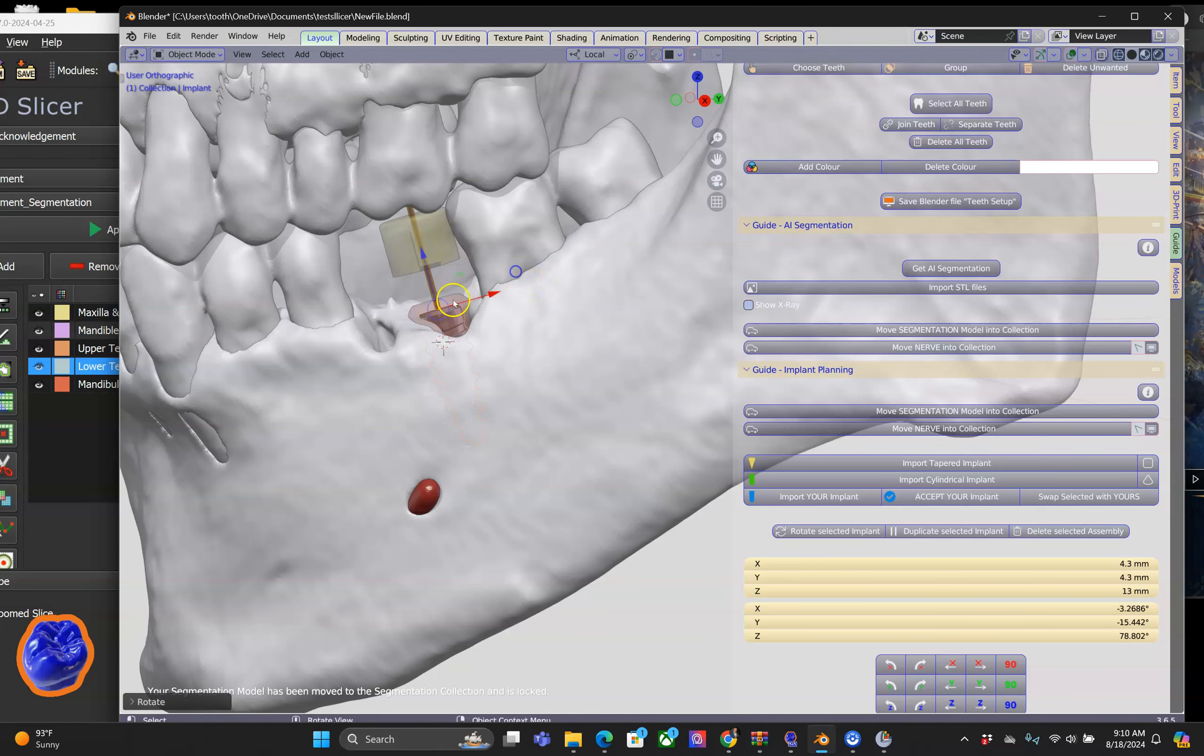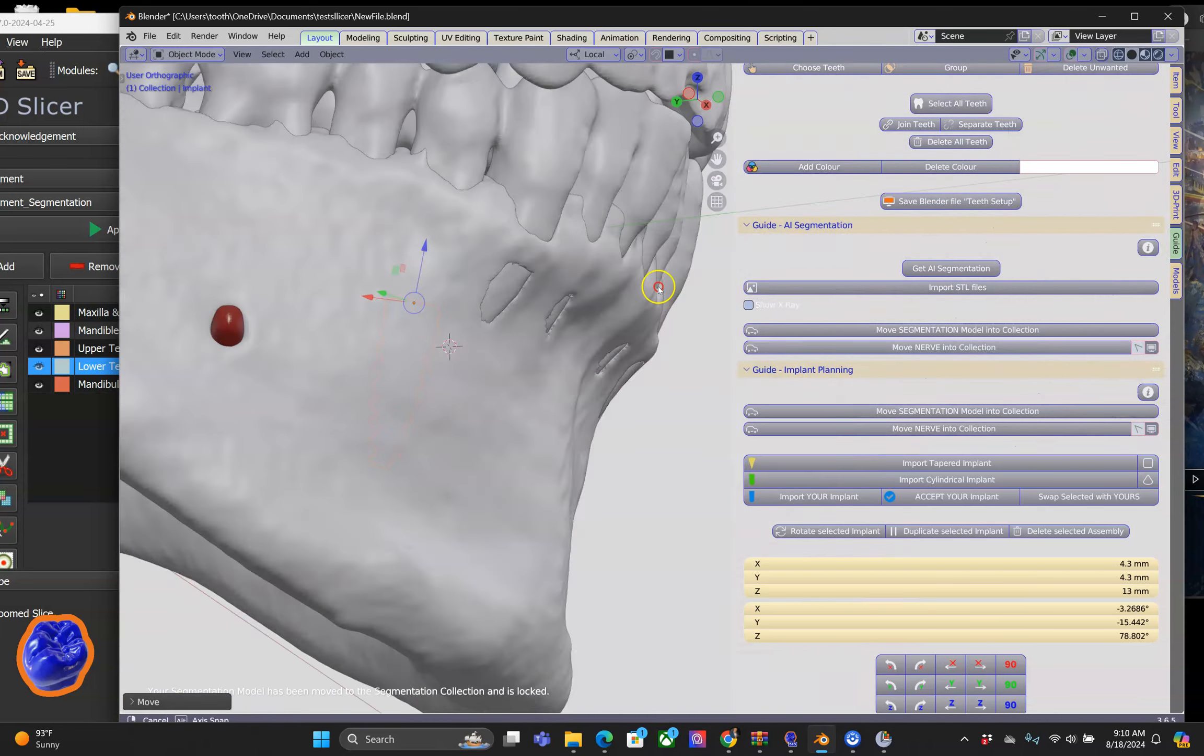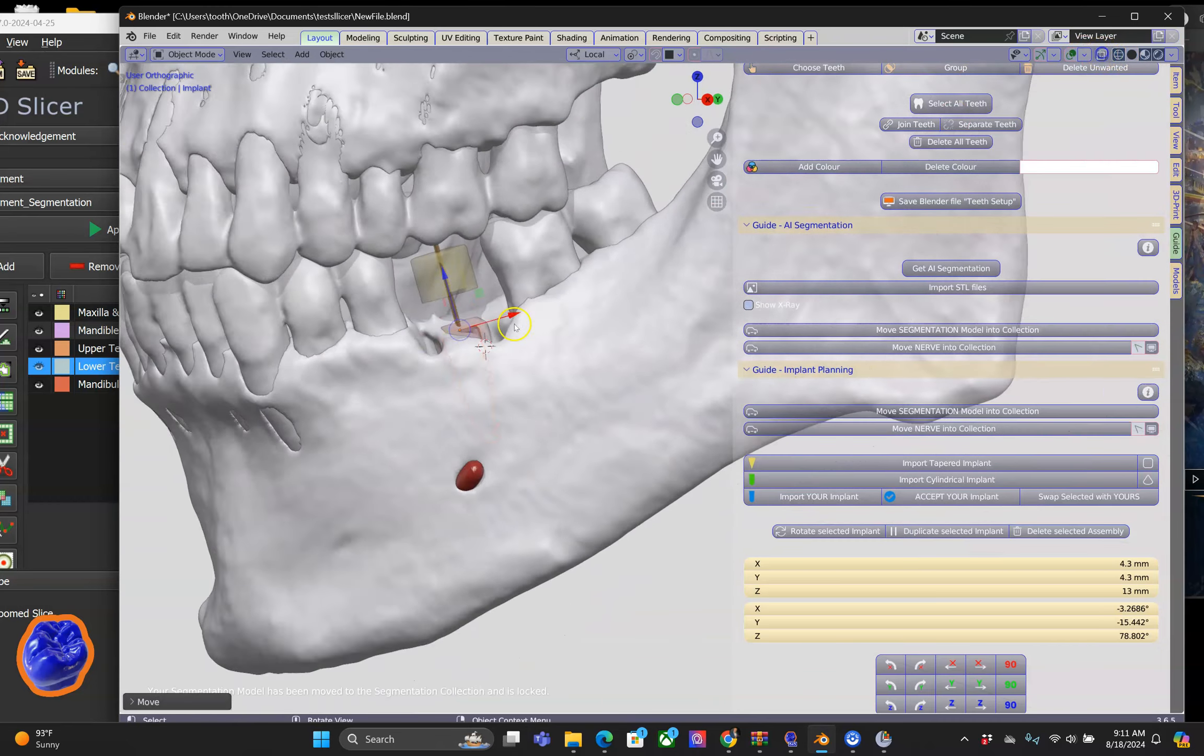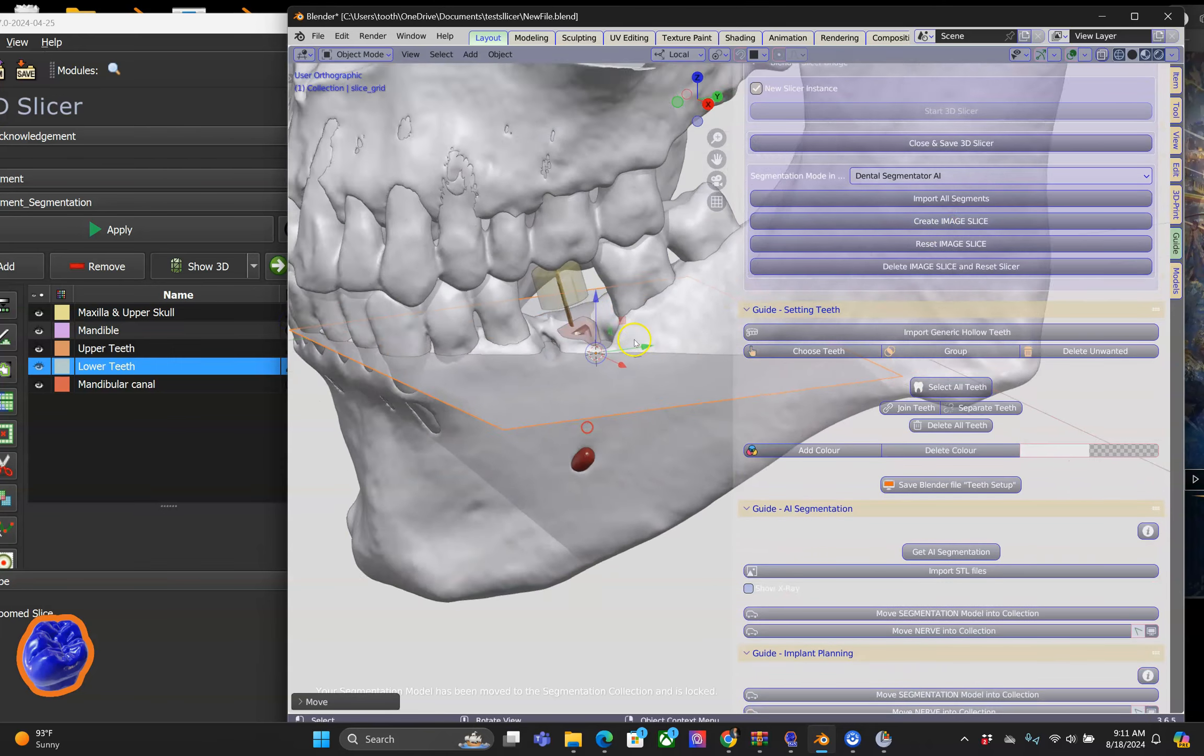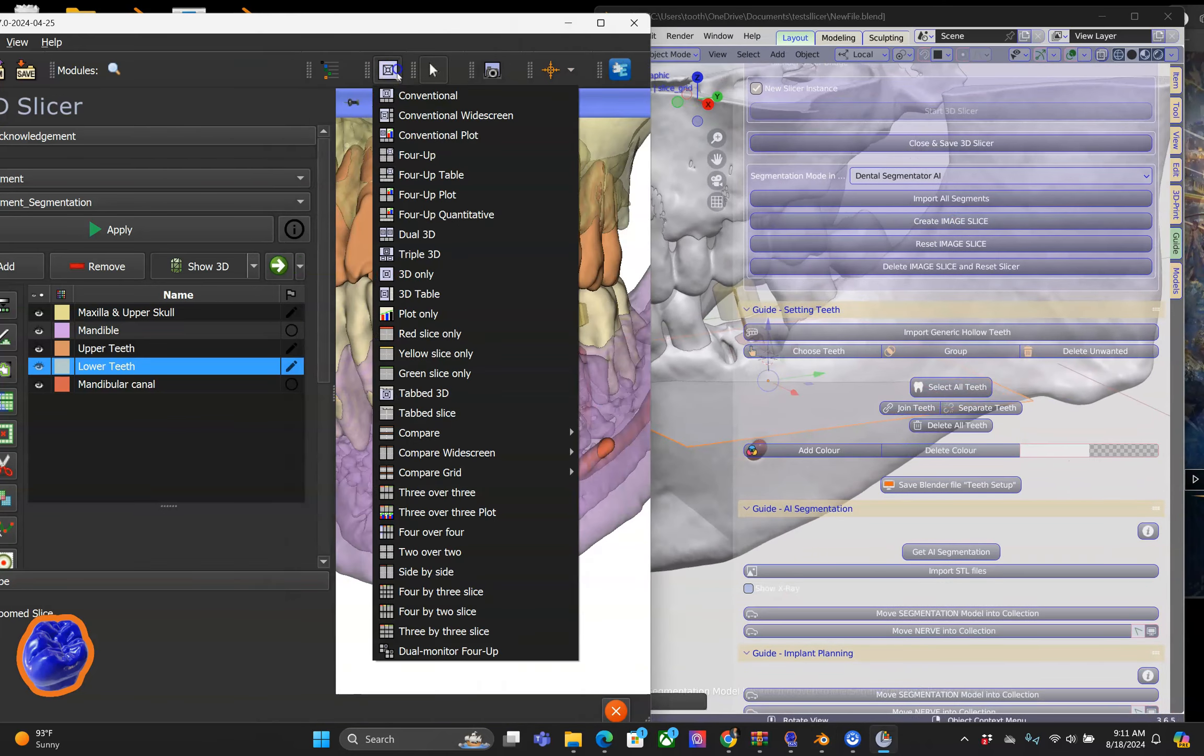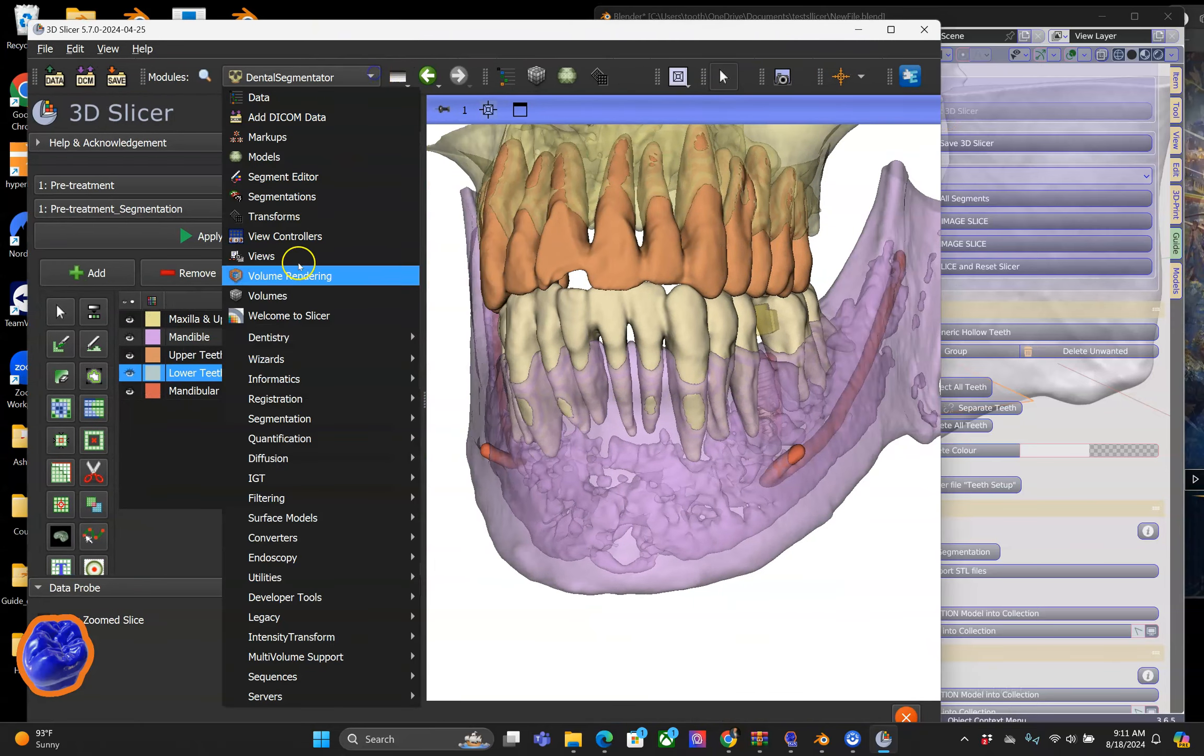The next best thing that we have in our program is we can import a 3D slice, and this slice will control the behavior in 3D Slicer, which is absolutely incredible.